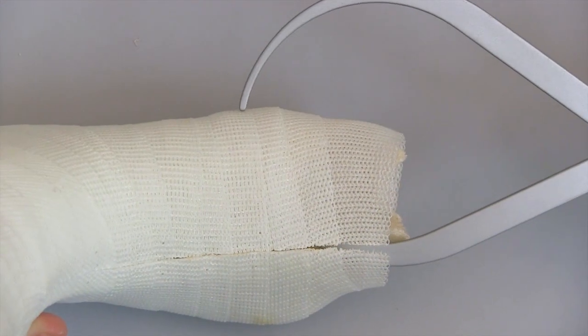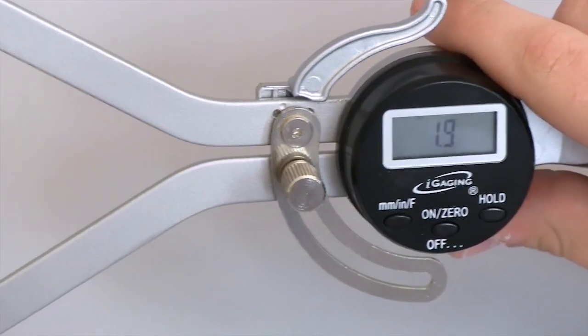Hi, I'm Micah. I'm the Digital Modification Supervisor here at Cascade DAFO. In this video, you'll learn how to measure cast thickness using calipers.